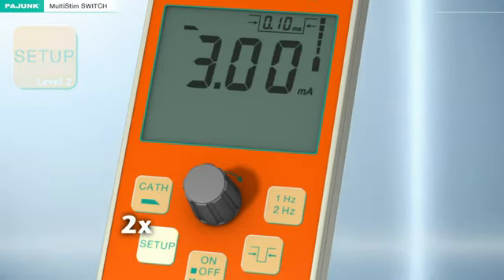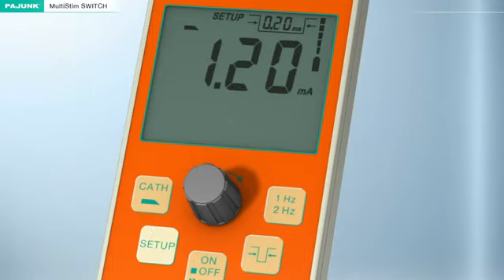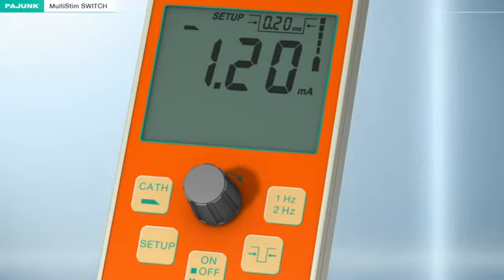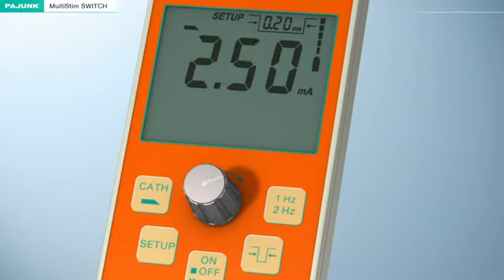The cannula mode can be adjusted in Level 2. Individual stimulation parameters differing from the manufacturer's default settings can be defined. The following should be observed. The settings for the frequency and the impulse bandwidth must be adjusted in normal operation, that is, before pressing the Setup button for the first time. The intensity of the current can still be varied in the Setup function by turning this knob.